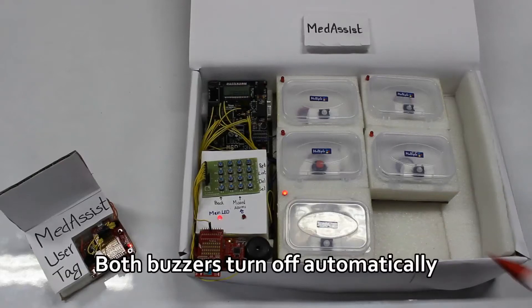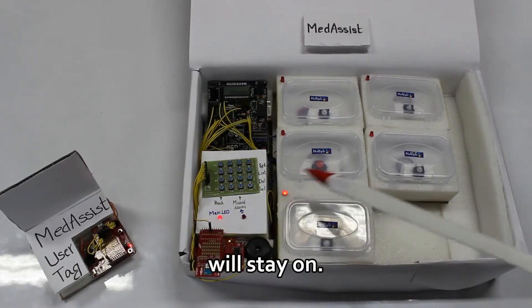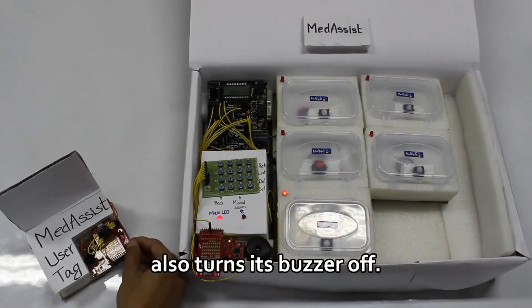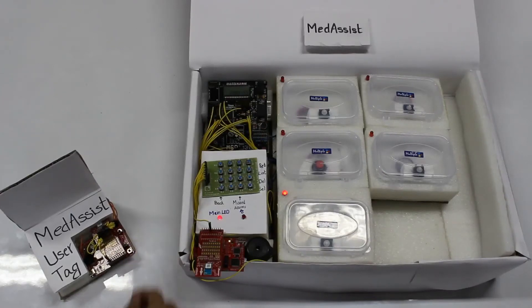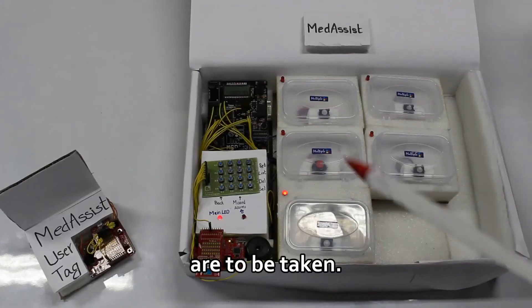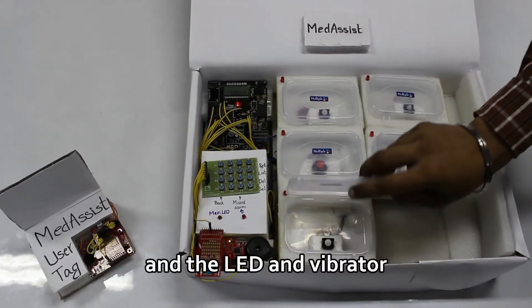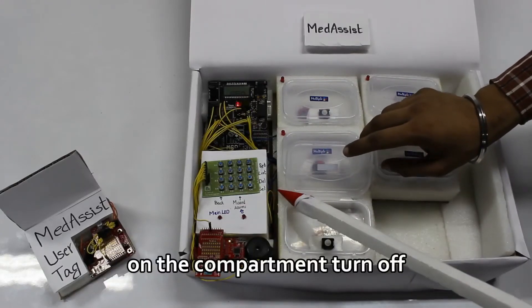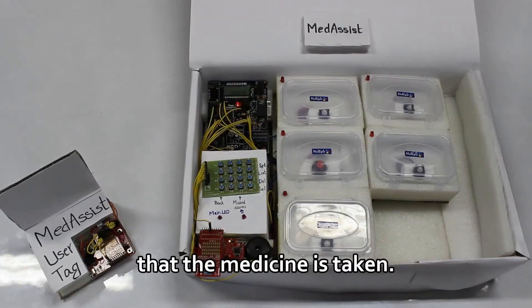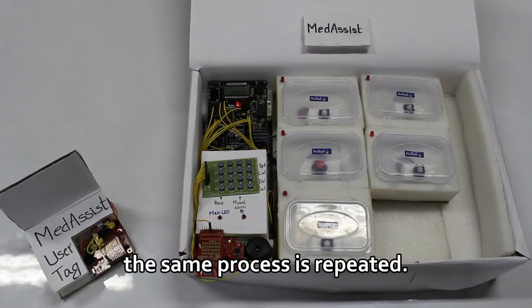Both buzzers turn off automatically in 15 seconds, but LEDs and vibrators will stay on. Pressing a button on the user tag also turns its buzzer off. The last line on the LCD shows how many pills are to be taken. On opening the indicated box, the main LED and the LED and vibrator on the compartment turn off — that is, it is assumed that the medicine is taken. If the medicine is not taken for another 15 minutes, the same process is repeated.